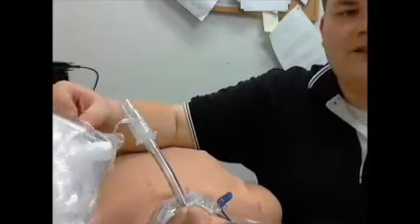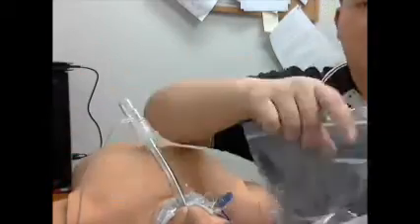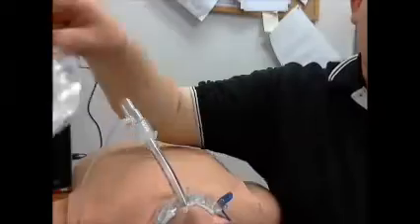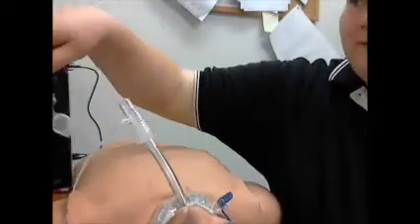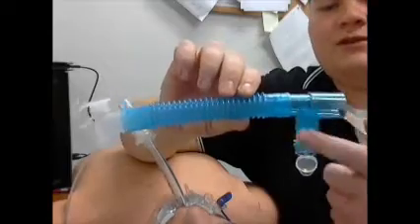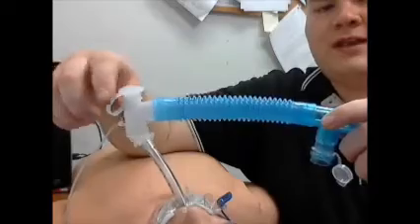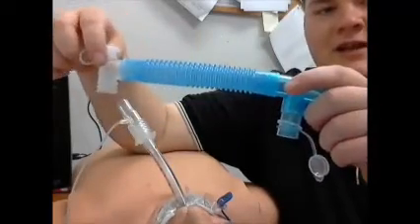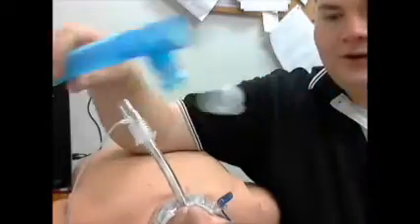We could rig up a regular nebulizer with a roll of tape and figure out how to make it work, but it's not going to be pretty. We bought these kits — they'll go on every ambulance, two of them each. It's just a Ziploc bag with a couple different things inside: a regular nebulizer just like we have in the cabinets, a T-adapter, a blue tube that's kind of an extender for the nebulizer, and a 90-degree elbow that's going to hook into our ET tube.